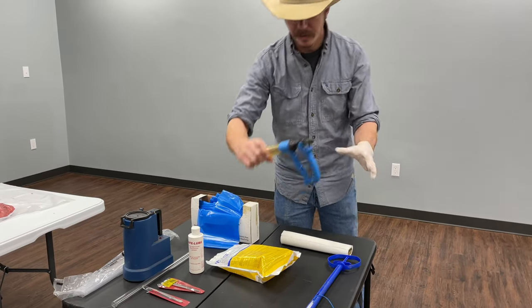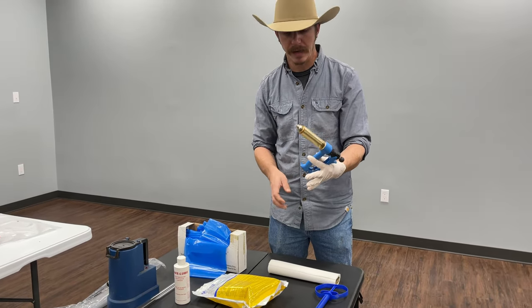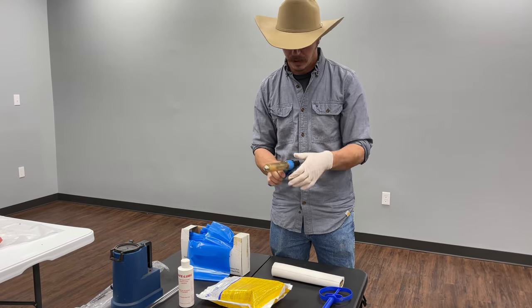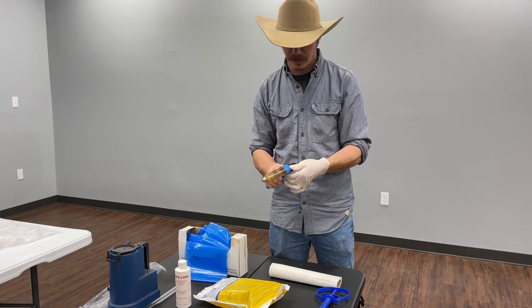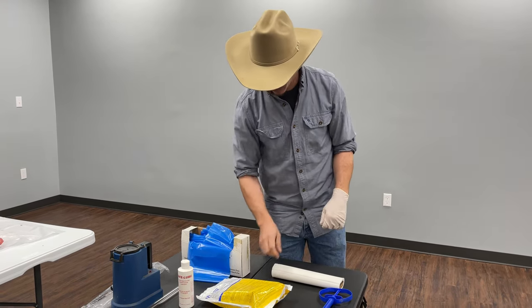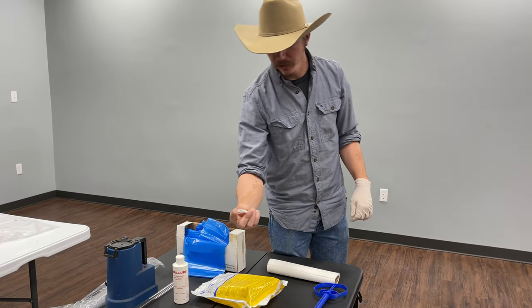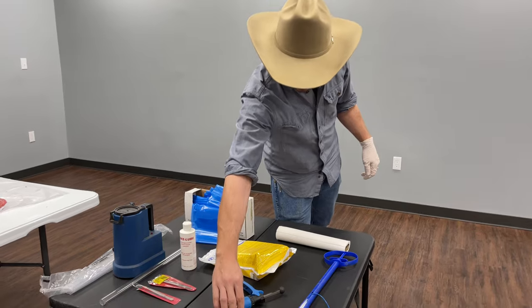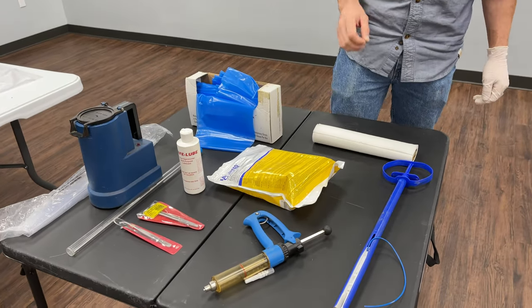Another item is a syringe of some kind. I like the repeat syringes because they're easier to use — you can work several head with them. You set it on however much you want to give each cow per dose. You're also going to need needles for intramuscular injections. For AI protocols, it's better to have an inch or bigger.